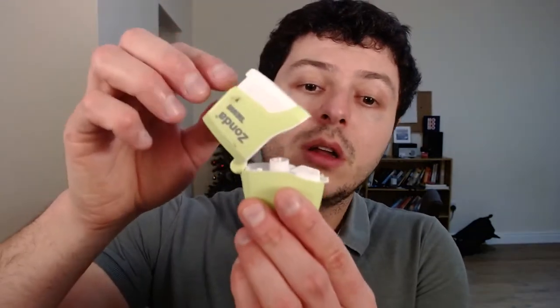And basically that's it. Once you've done that, you flip this open again to take the capsule out — it should fall out easily. If you look at it, it's empty. The little powder that was in there is all gone deep inside my lungs because I've taken the forceful breath in. Then you just basically close everything together and it clicks closed. That's it — you only have to do this once a day. Zonda is quite easy to use once you get the hang of it. The good thing is that you only need to use it once a day.